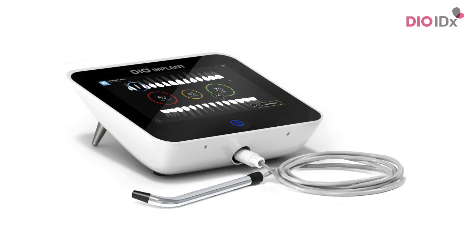The Osstel IDX allows you to record data. This data is valuable for your implant treatments. The unit helps you to maintain a data set and tells you over time what happens to the implant. It helps you to make an objective decision. Remember that it is important to measure at implant placement for a baseline reading and again before final restoration. This video will guide you to help you get the best value out of your IDX.